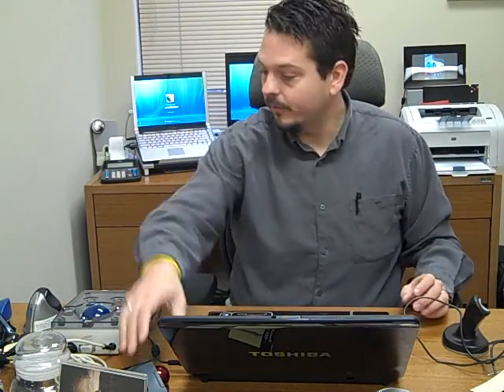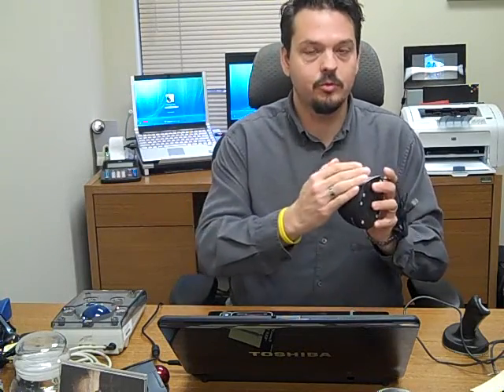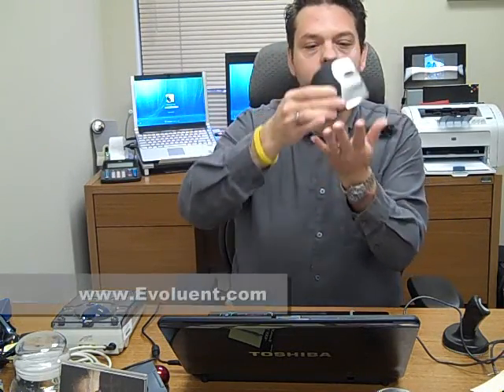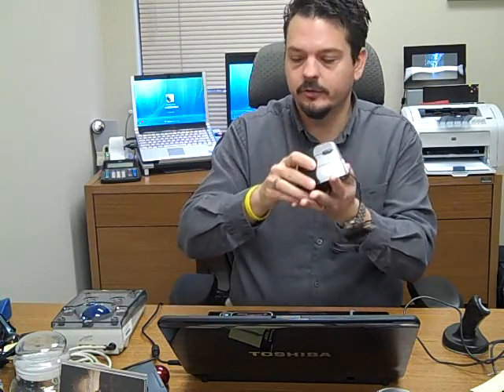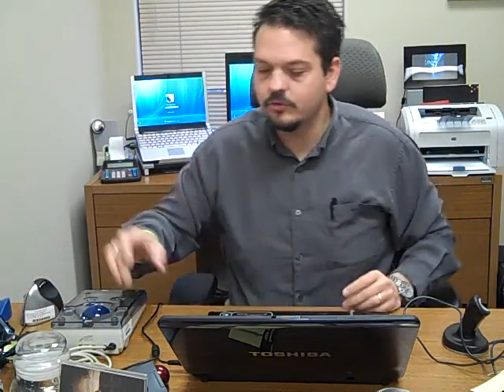For example, you might be familiar with a regular mouse which is shaped sort of like this, but this is a mouse that's turned on its side so that it sits like this, and somebody puts their hand here and is able to move the pointer around on their screen. I've got a number of devices here that do the same kind of thing. They're all like a mouse, but they're shaped differently.